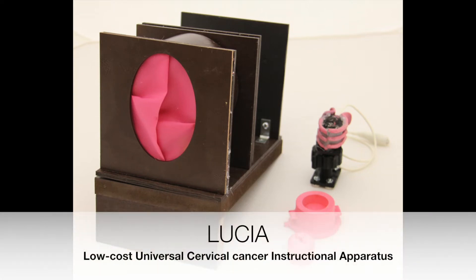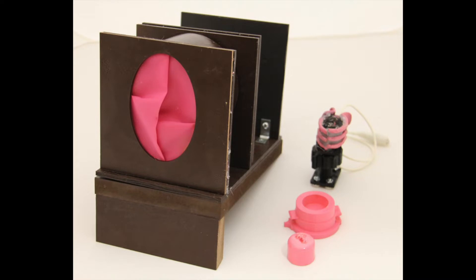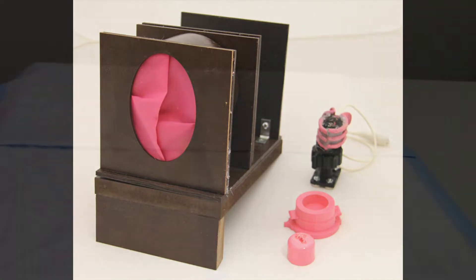Lucia, the low-cost universal cervical cancer instructional apparatus, was developed at Rice University to provide a low-cost accessible way for healthcare providers in medically underserved areas to learn and practice the important skills of cervical cancer screening and prevention.